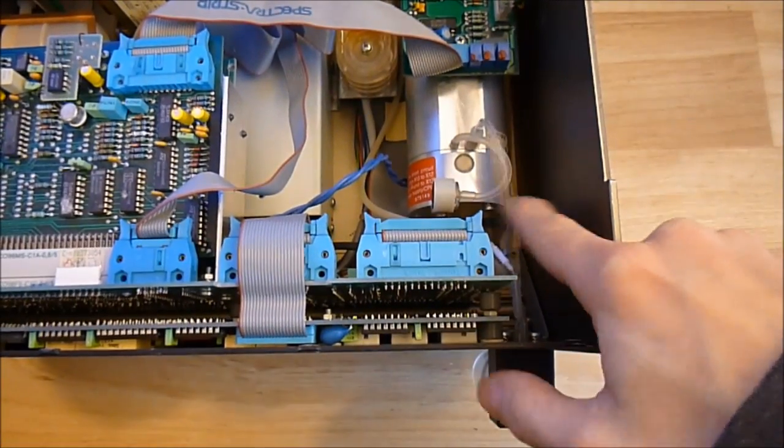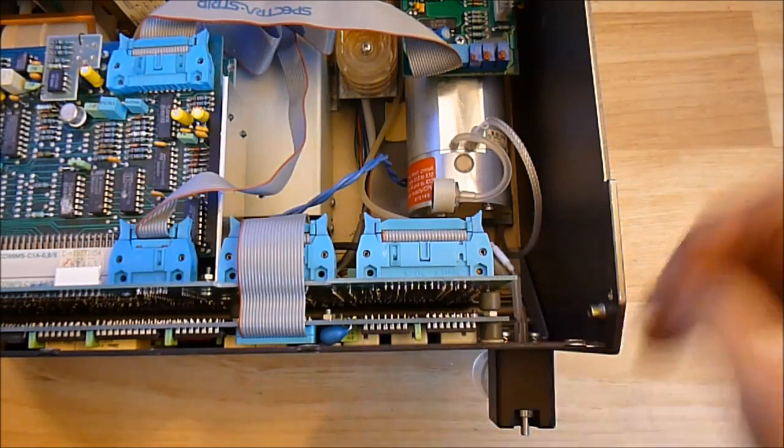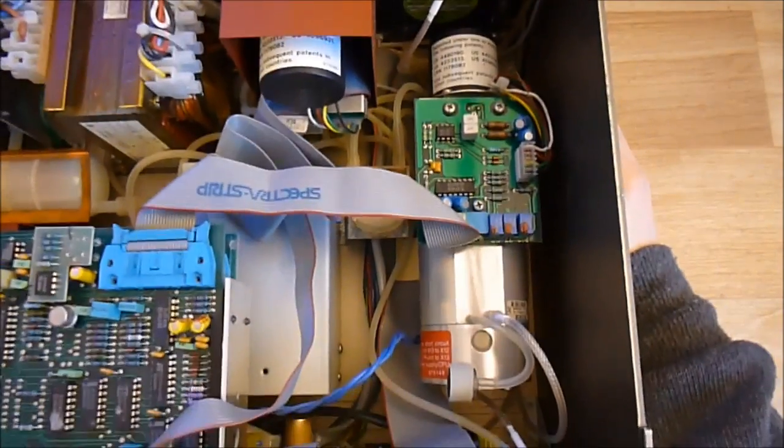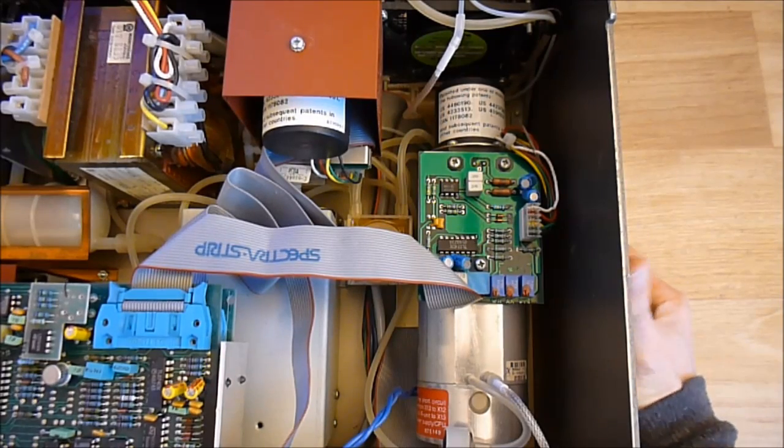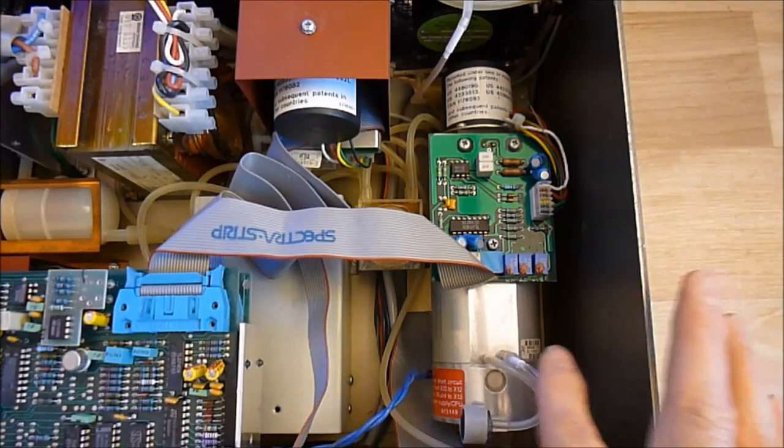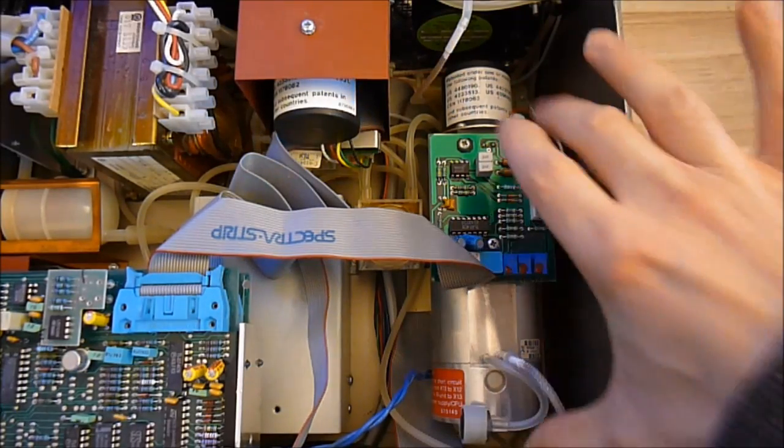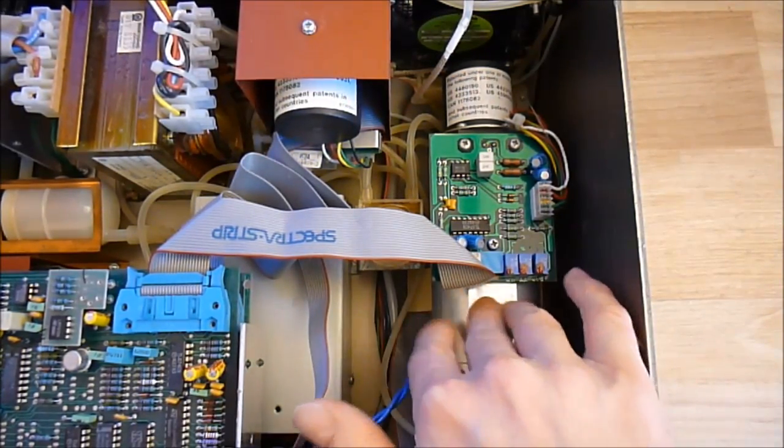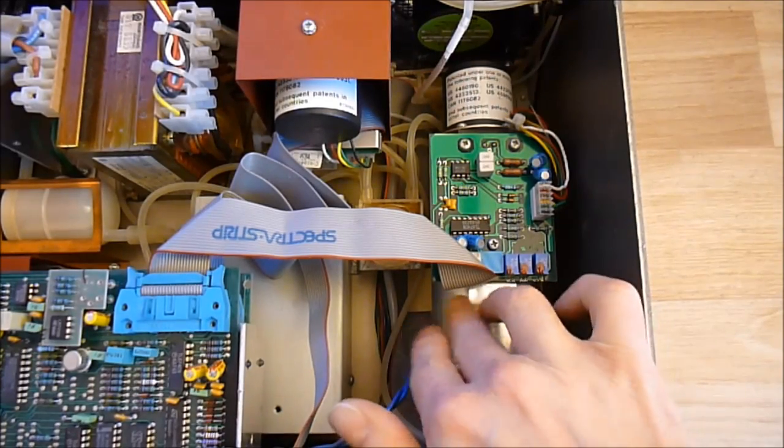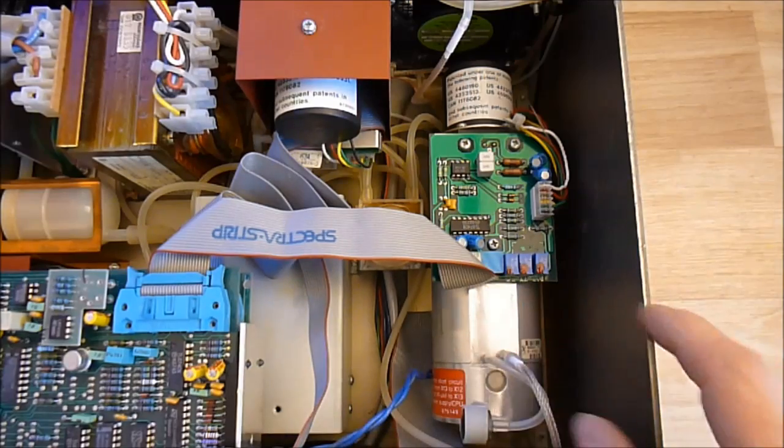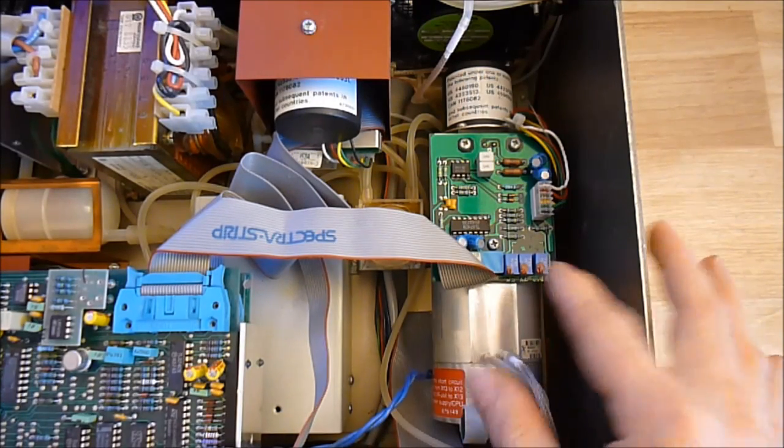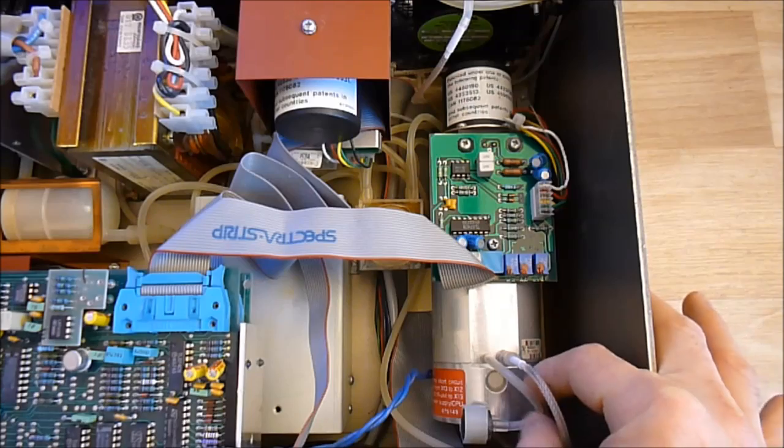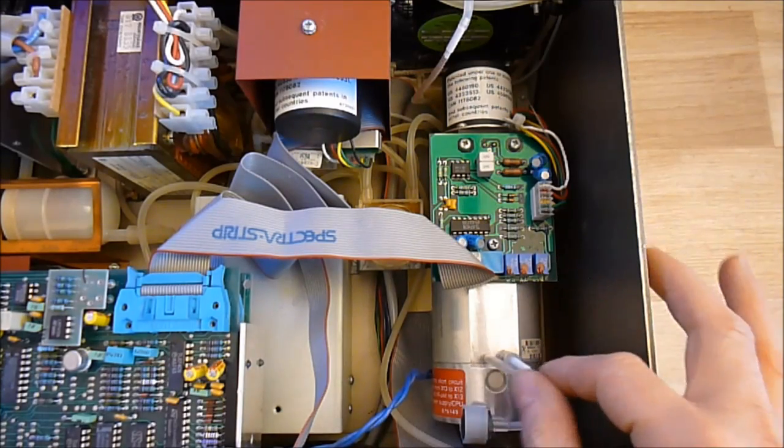Here is the main air input from the anesthesia mask. And we have, it seems, three major measuring devices. So the bigger one is this one, a very long thing with a very nice aluminum body. I believe it is some kind of spectrophotometer, assembling with a color wheel filter and stuff like that, according to what I saw in the service manual.